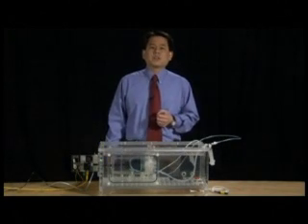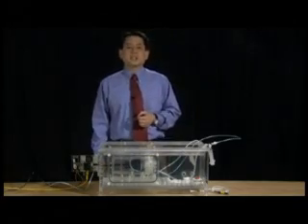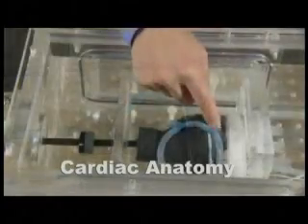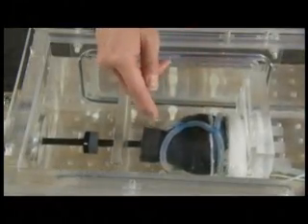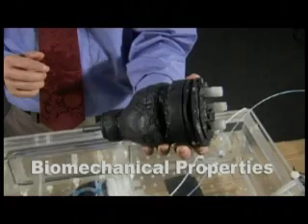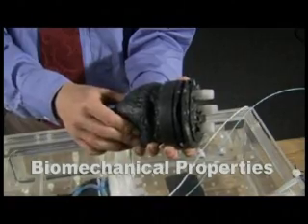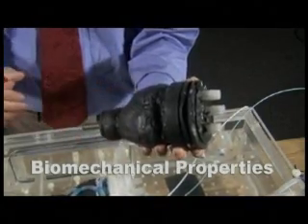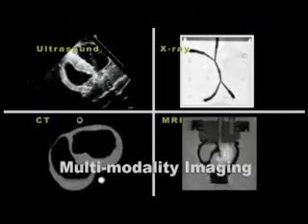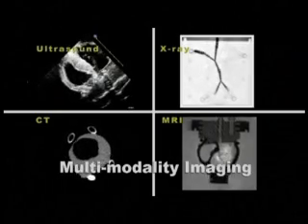For the particular needs of our research projects, the first version of the cardiac phantom that we developed has a geometry that mimics the anatomy of the left and right ventricles, as well as an abstract representation of coronary vasculature. The tissue substrate used for the organ body is a hydrogel with tuned stiffness characteristics that approximate the biomechanical properties of soft tissue. The hydrogel itself has also been doped with contrast materials to allow it to appear like soft tissue under ultrasound, X-ray, CT, and MR imaging.